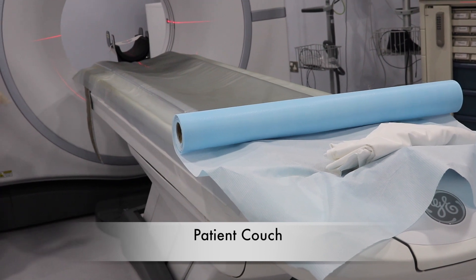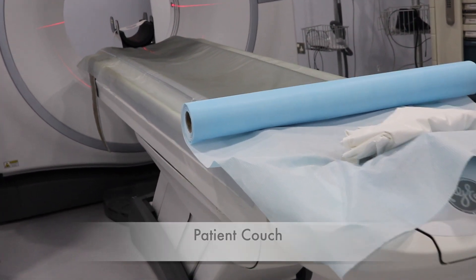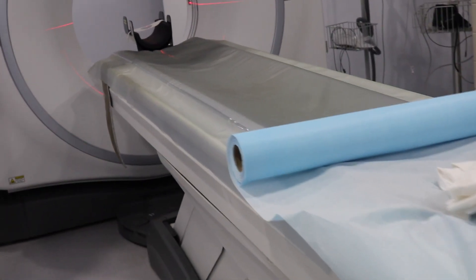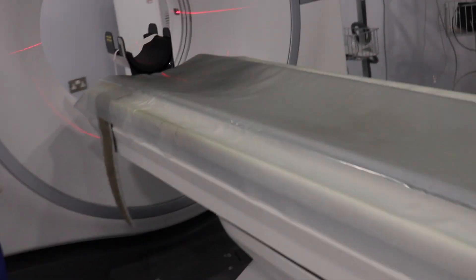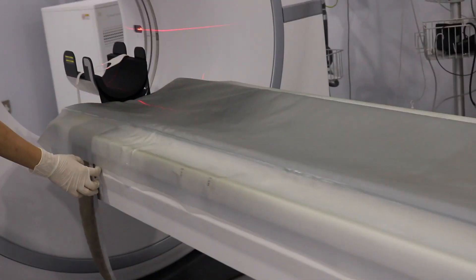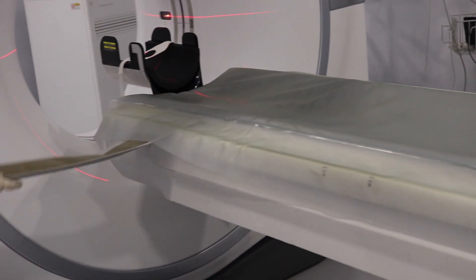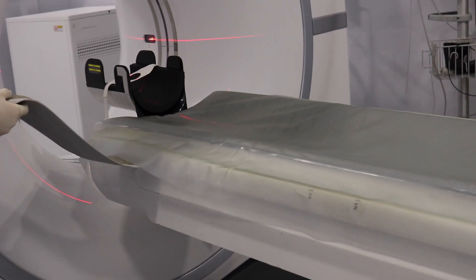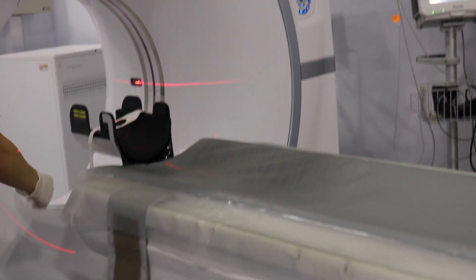This is the patient couch, also known as the patient table. It contains two immobilization bands, as we can see here, that are used to immobilize and stabilize the patient during the procedure.